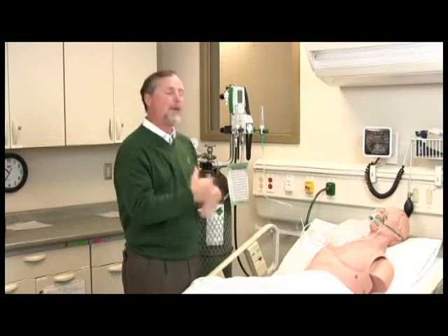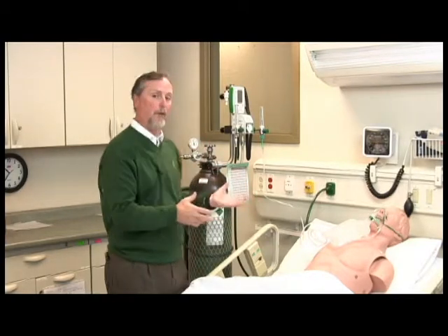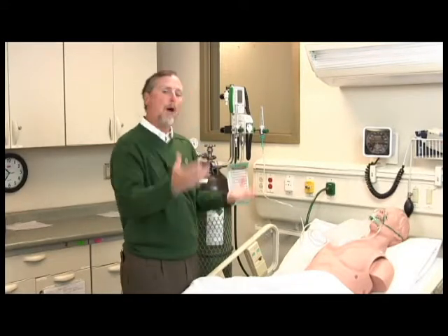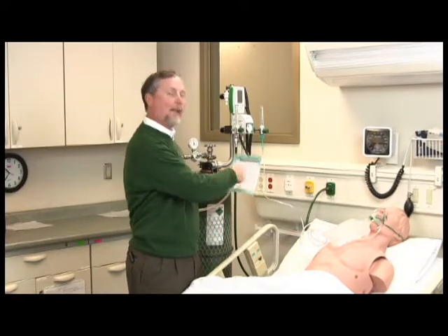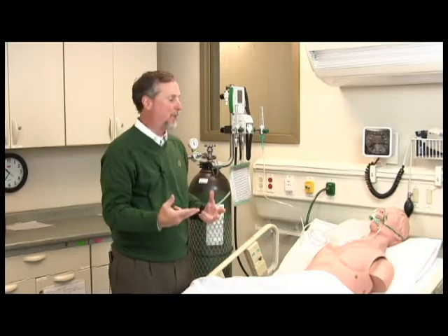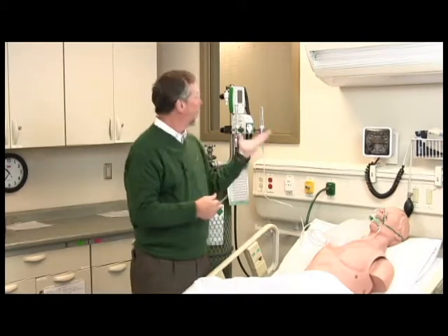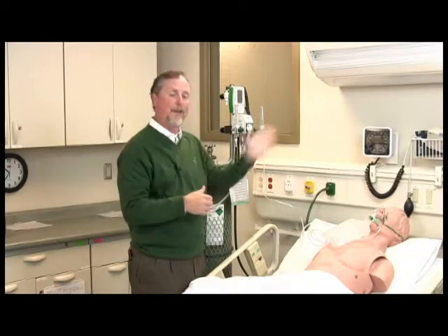So if you know the actual total flow of the patient, you can take your Heliox cylinder duration factors and calculate, whether you're using 80-20 or 70-30 cylinders, how long their duration will be at its total flow. So you do two things when you use the blender. You're able to give the correct FiO2. The blender is accurate to plus or minus 3% oxygen. And you're also able to figure out this flow.